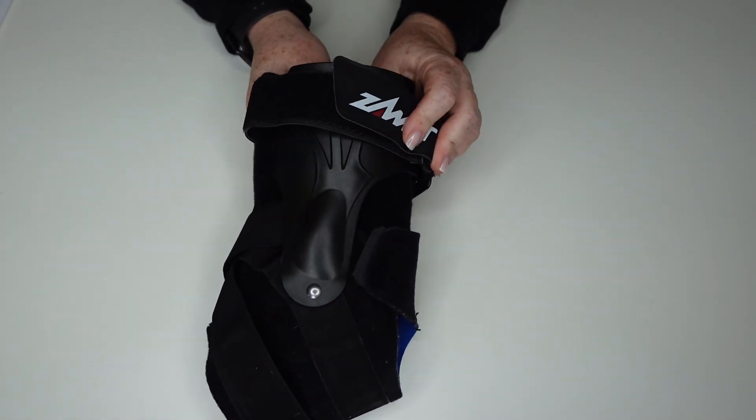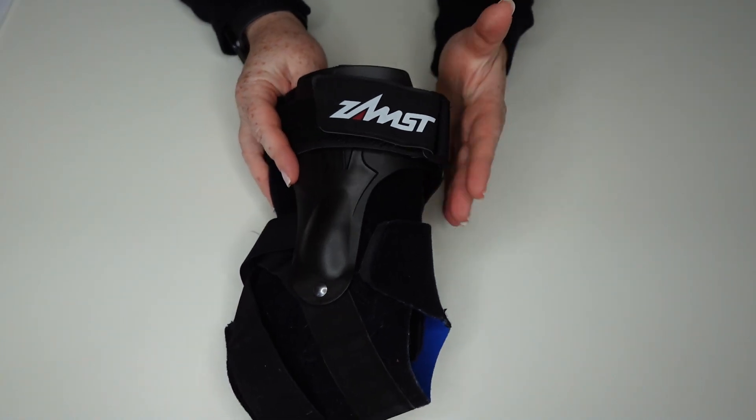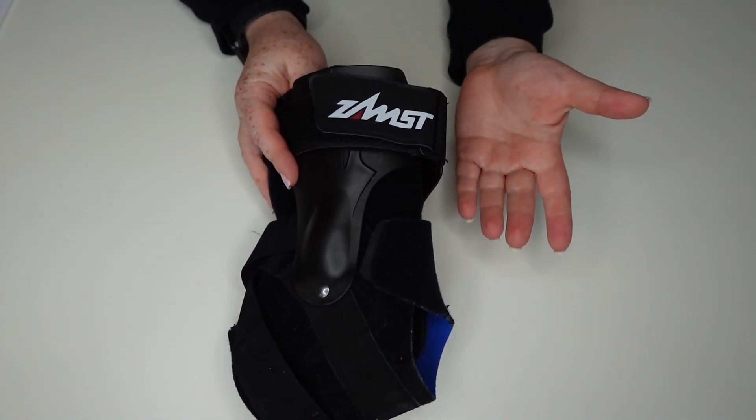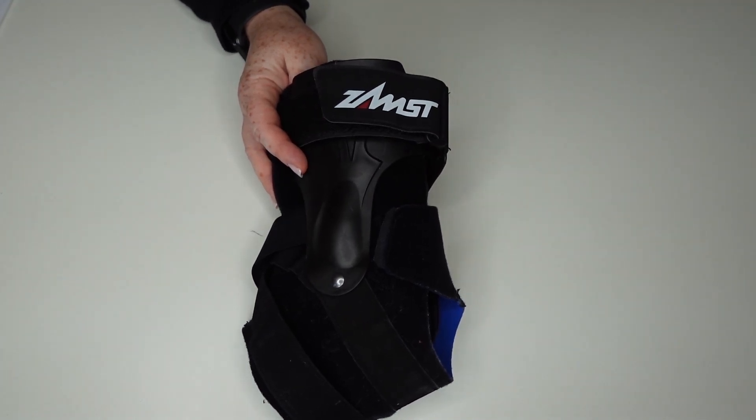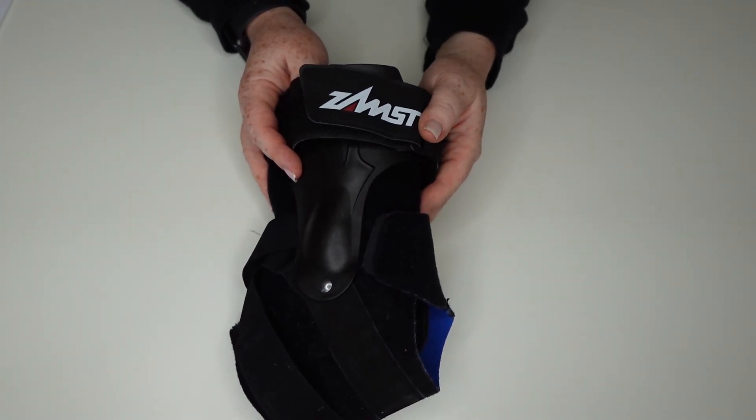My husband felt really confident being able to get back to his regular activities, wearing this with his regular sneakers. He wears a size 9.5 and this is a medium, so it fit him perfectly well and he felt confident to return to everyday activities after having surgery.